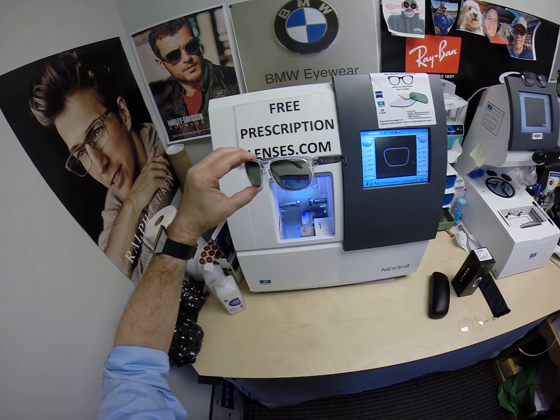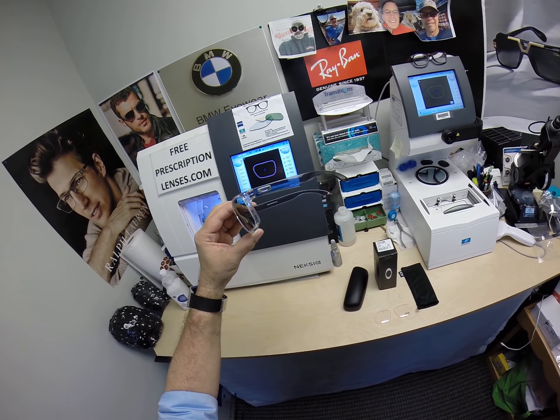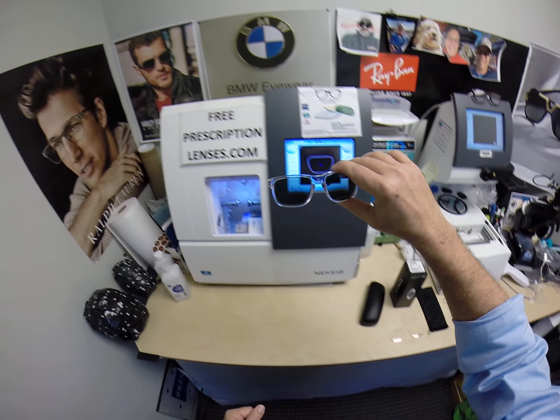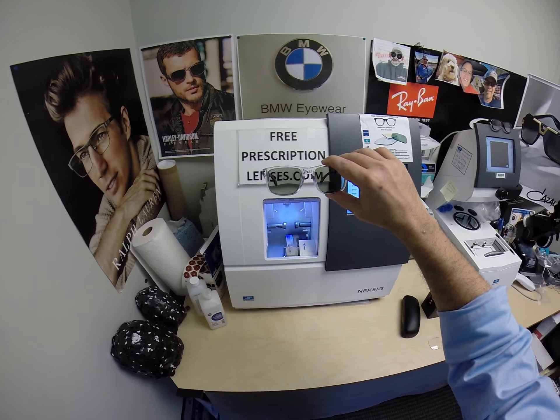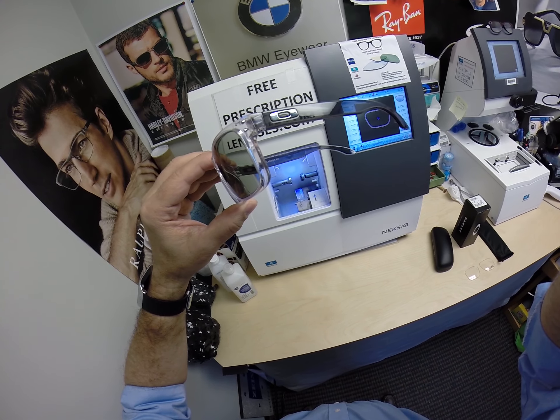As you can see, they continue to lighten. The Extra Active will turn 30 to 50% dark behind a windshield. All photochromic transition lenses are temperature sensitive — they get darker at 85°F and below than they do at 95°F and above. When it's 100 degrees outside, nobody works 100%; we all work better when it cools off. I can do any prescription — single vision, line bifocal, or progressives in all photochromic colors. I can do any coatings from Zeiss or Essilor, Extra Active with mirror coatings. I just can't cut these in-house, which is why this is an abbreviated video.